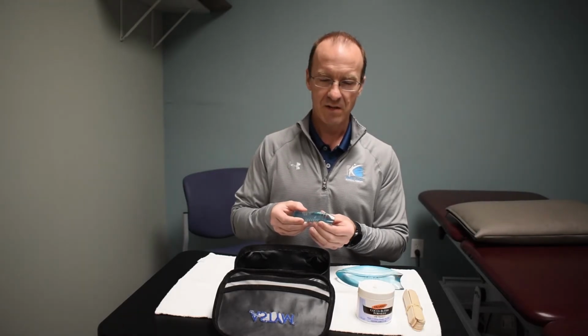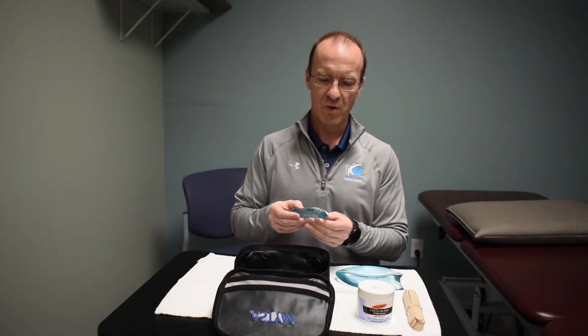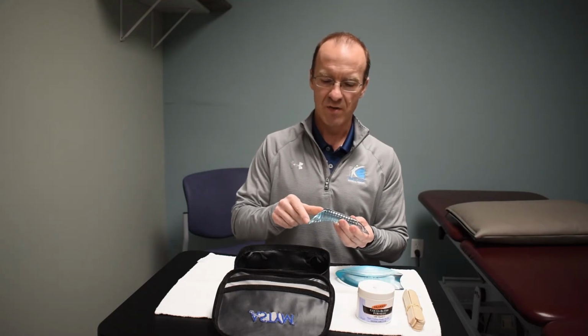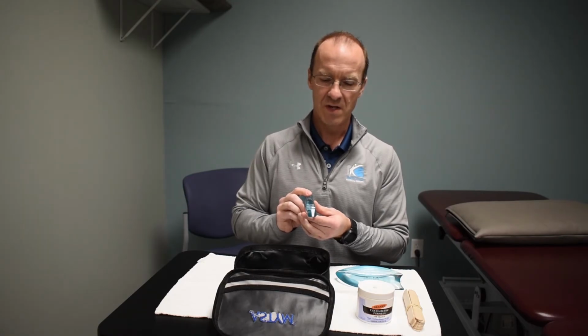And then last but not least, we have what's known as the Isolator. And the Isolator is really the deepest. You can see that again, it still has that beveled edge, but it is much smaller than the rounded edge that we had on the Localizer. And this one is the one that's going to really stimulate the greatest amount of change on the tissue.